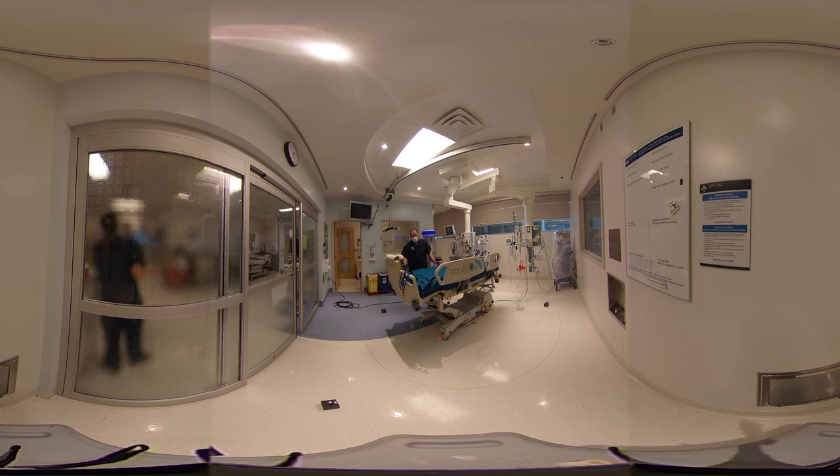As far as wires and pumps, if you can open them you open them; if not, then the exterior will be exposed. Any bunching of equipment cords or hoses — as much as possible spread them out so as much light as possible can hit them. Depending on the room, you will not always have this much equipment, so things will go a little faster. The point is to get as much light as possible on the equipment, and if you have too many wires, try to position them where you can.